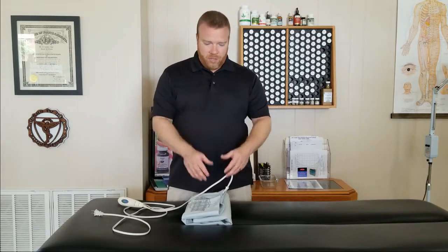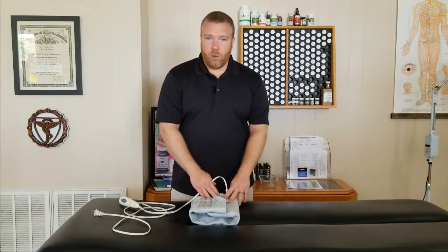With the heating pad turned on, fold the heating pad over that damp cloth. What that's going to do is trap the heat in there and heat up that damp cloth really fast. If you just put the damp cloth in and place it straight on the area you're trying to work on, it's going to take five to ten minutes to get that cloth warm. By folding it over, that's going to happen a lot quicker, and when you're ready to use it, it's already nice and hot.